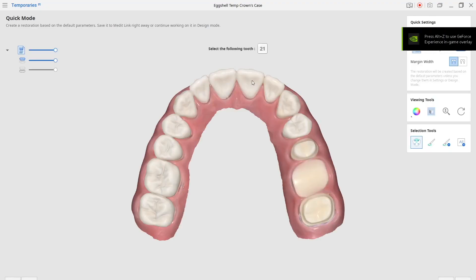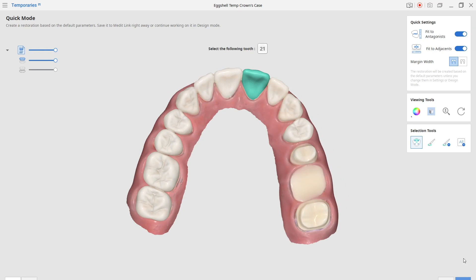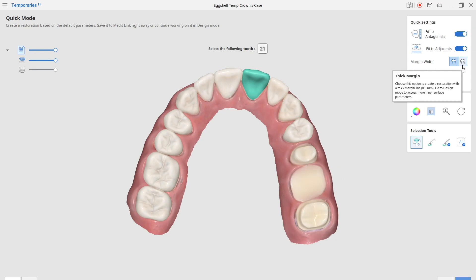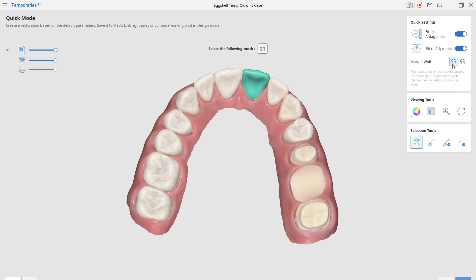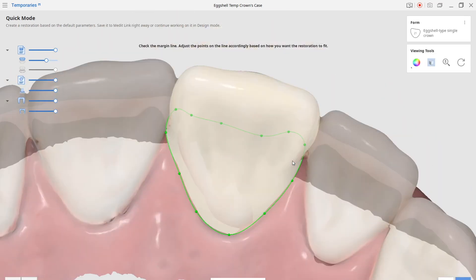In this case we have the upper left one, so we're just going to select that tooth. It's very very quick and easy with this workflow, you're going to be amazed. You can see that we can select either thin margin or thick margin — it's just your preference, whatever fits the antagonist and the adjacents. So with those functions set, I'm going to click next.